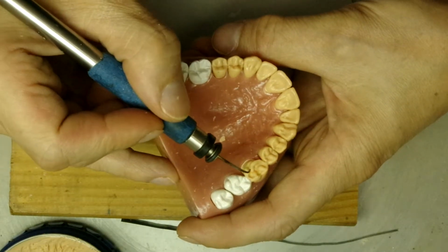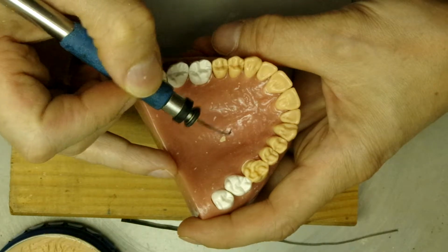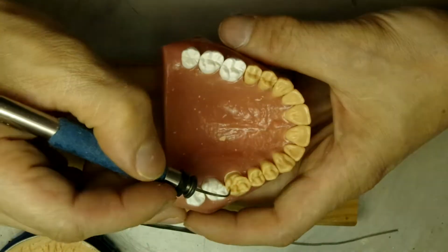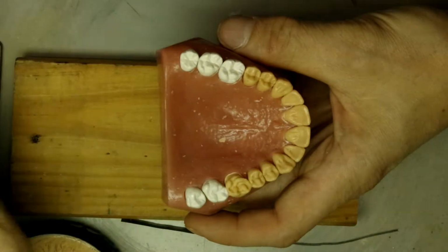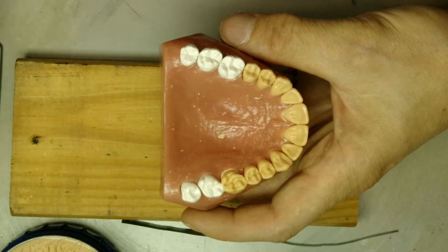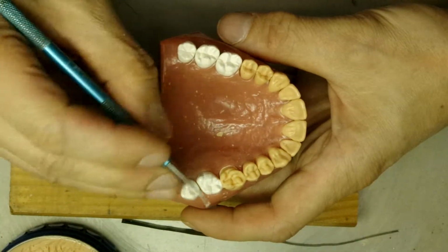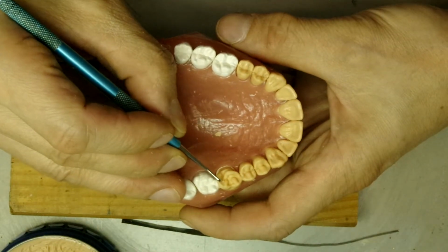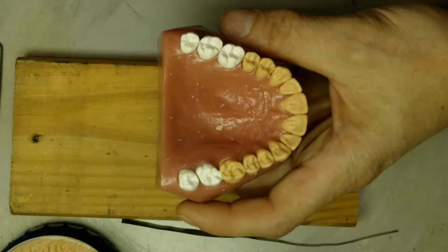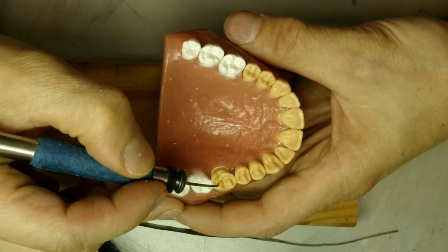And this kind of gives us the distal lingual groove right there. Now we're going to add a secondary ridge since we have the room. Remember, if you drip it, you can always take it out. But then we have to round this again to make it look natural.